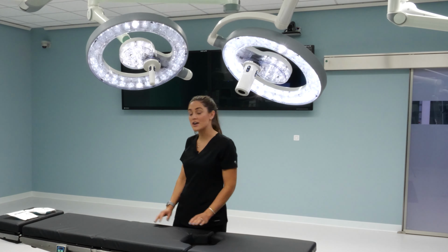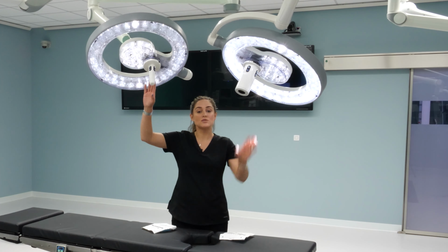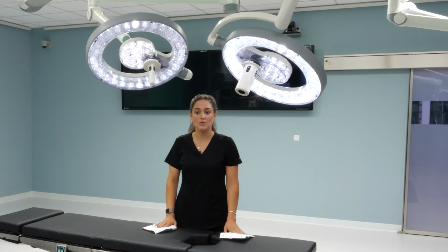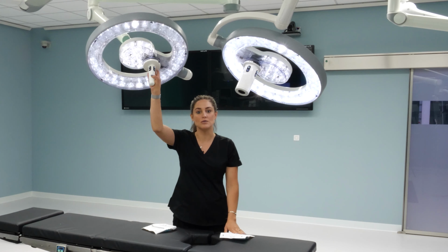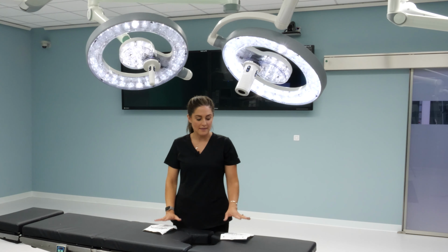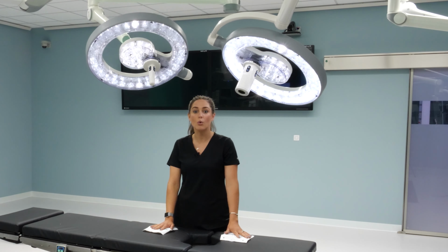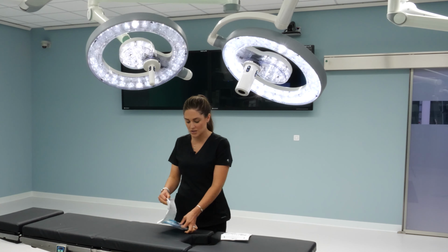Now to review the sterile cover options. You have one for the light as well as the camera, both disposable. There are adapters that you can get for the light if you want to use different covers than the ones that are provided from Steris. These can come direct from Steris or in your custom case packs. So I'm going to show you one of each.